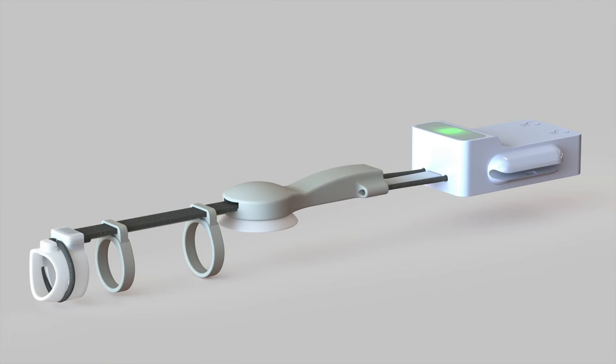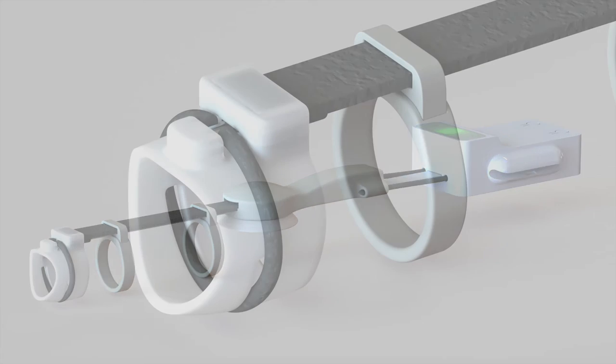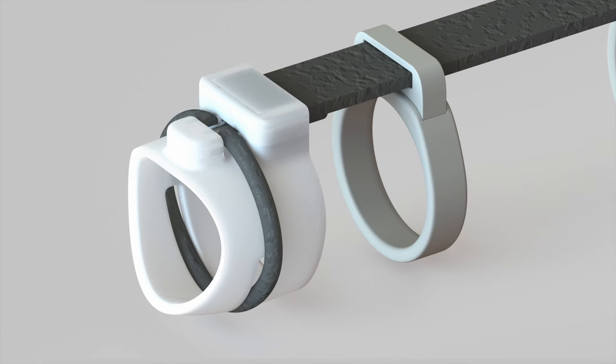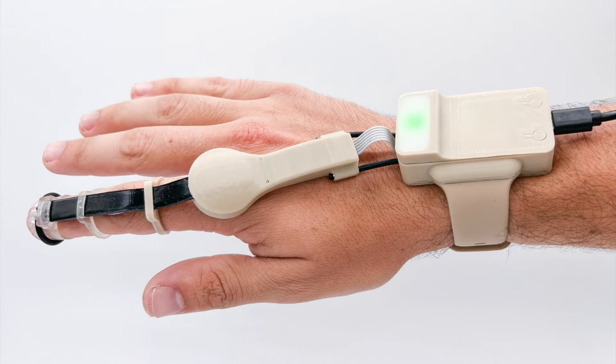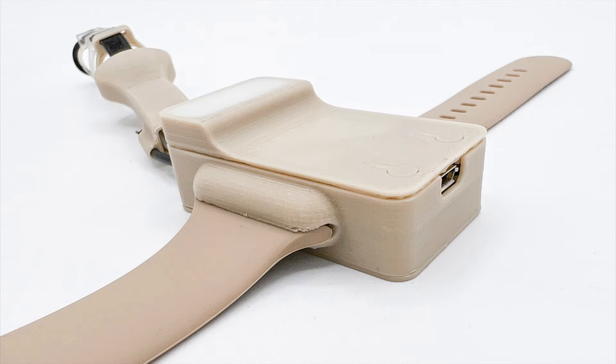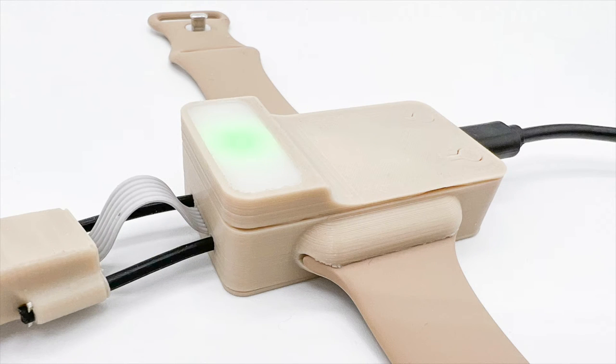A finger telemetry system was designed consisting of an angle measurement and a piezo-resistive force sensor for measuring pressure. A series of ring-like structures secure a one-axis bend-labs sensor along the dorsal side of the hand. A wrist-worn microcontroller processes the data based on a cost function and triggers a three-stage visual indicator as a predictor of the individual's future joint pain.